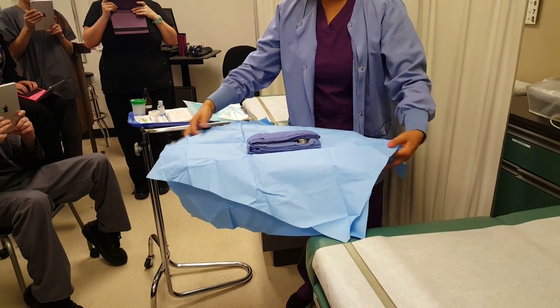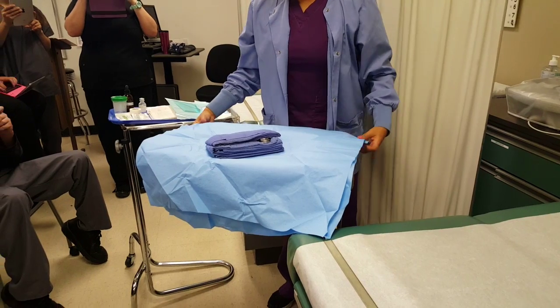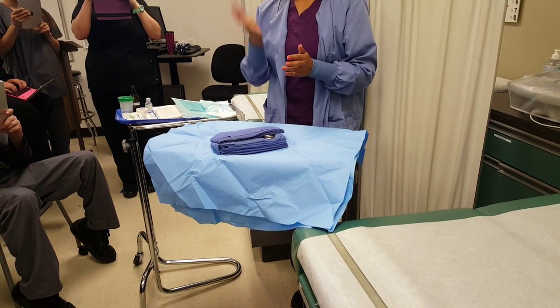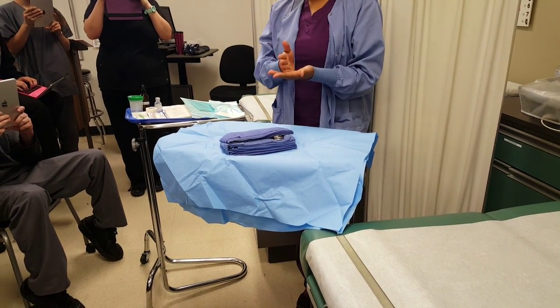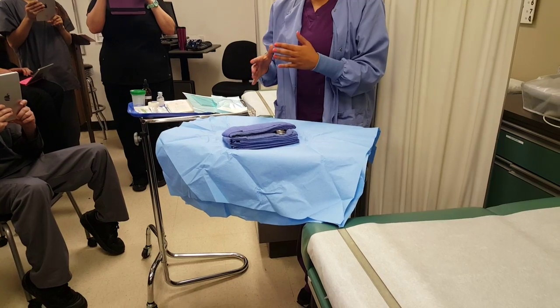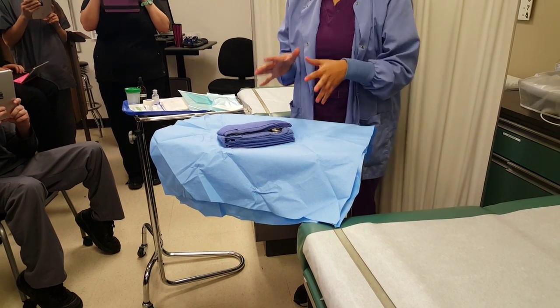Here are my items. In most surgeries you can't just have them laid out randomly — they need to be put in the order that the physician works: cut, remove, and repair. You have to put the items in that order so that they make sense for the physician.